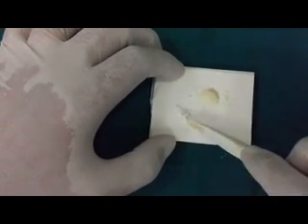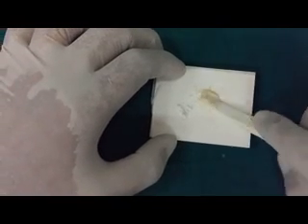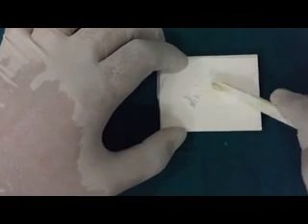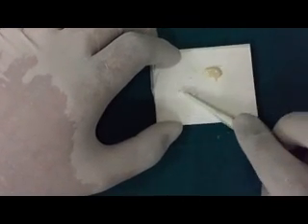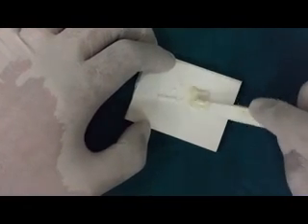The gloss on the surface of the material indicates the availability of free ions of the polyacrylic acid which is very important for the bonding of the material to the tooth structure.